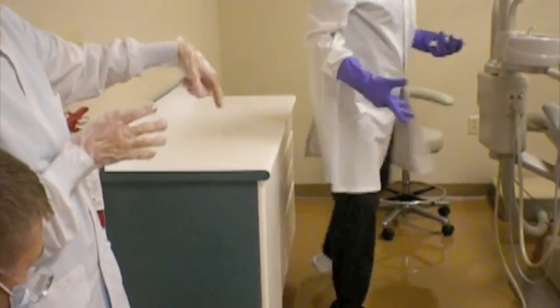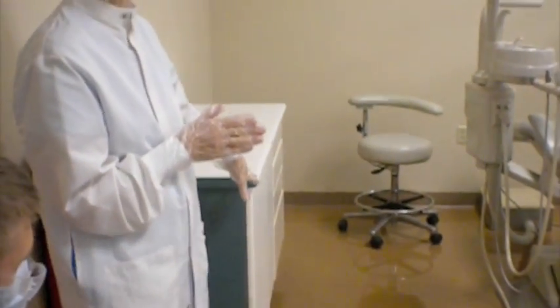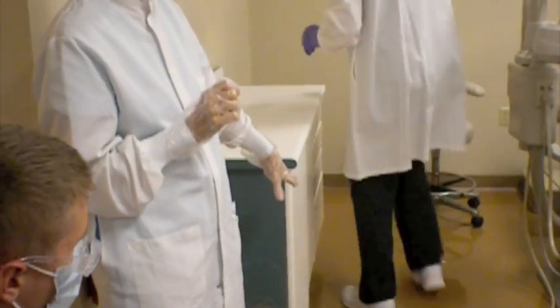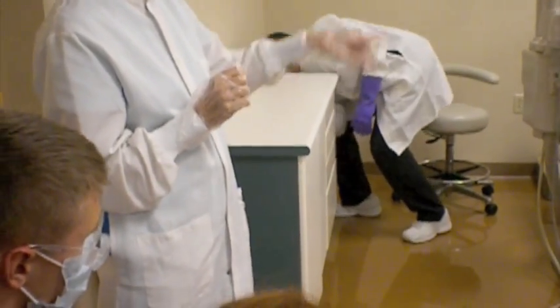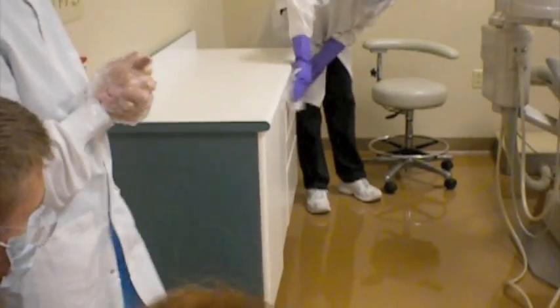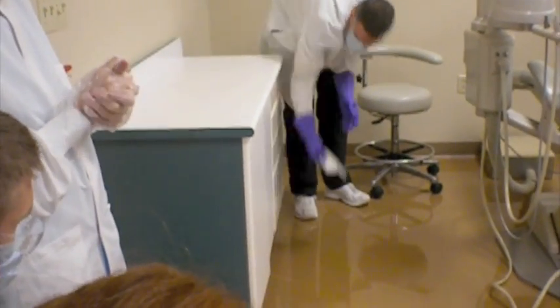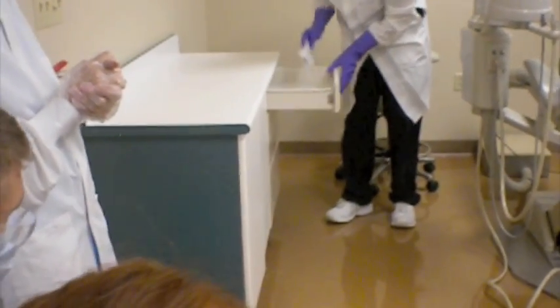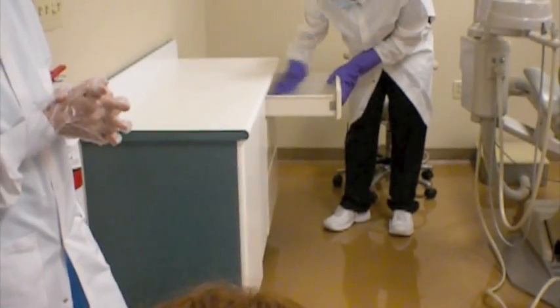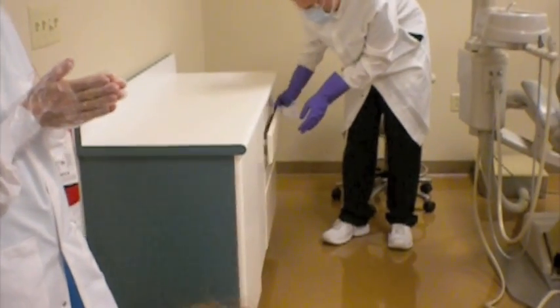And here, he would wipe, because there are 4 drawers, he would wipe inside each one unless there is a computer keyboard and mouse in the top drawer. And at this unit, the mouse and the keyboard are over there. So this drawer over here should be open. So wiping the outside of the drawers and then wiping the inside of the drawers as well, because I might want to put supplies in those drawers. And if I do that, they have to be sanitized and disinfected.